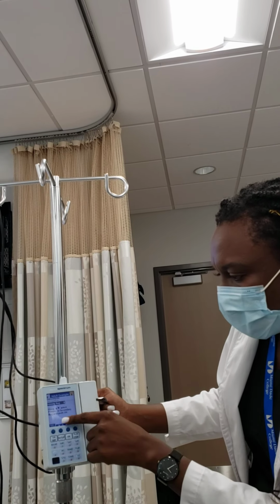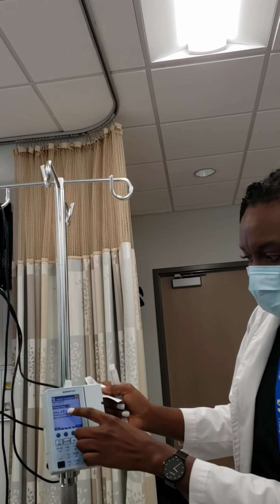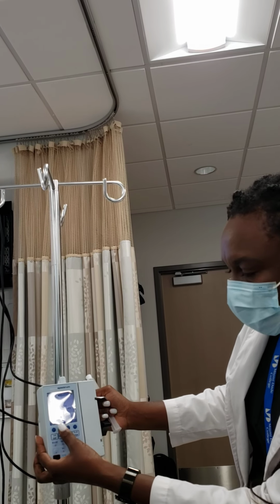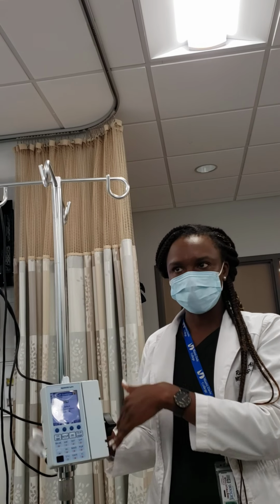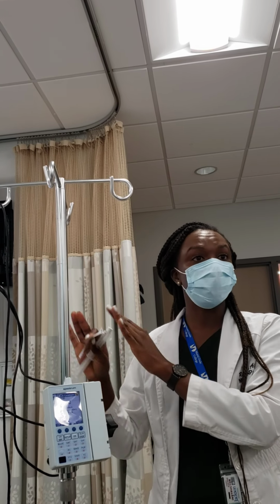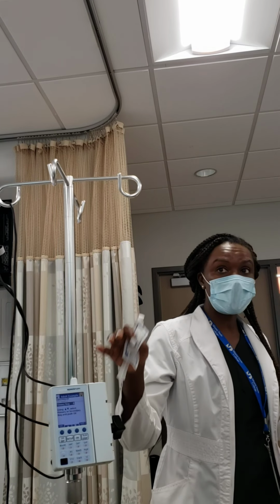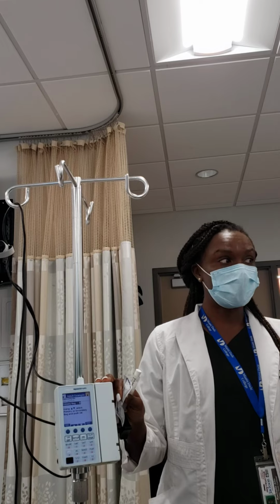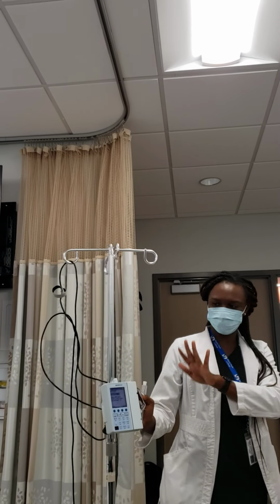So yes. And then now all you have to do is connect your tubing, and as you connect it in, it's telling you to choose either primary or secondary. If you're going to hang it as a primary bag and then it's done and you discard it, then you'll choose primary. If you're going to hang it as a secondary because you already have a primary bag hanging, as you saw in the video, then you'll do it as a secondary. Okay, and I'll show you. All right, so that's that part in terms of the pump.